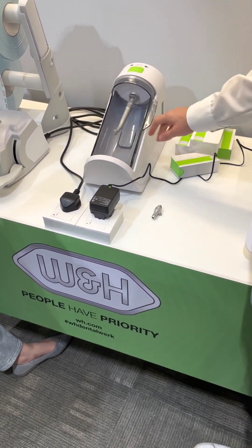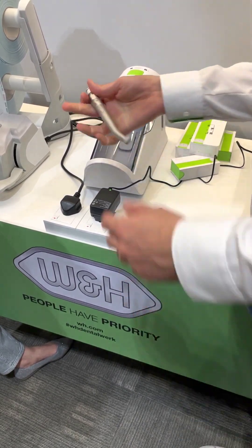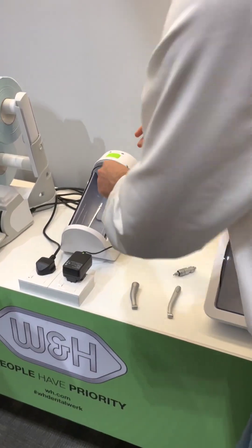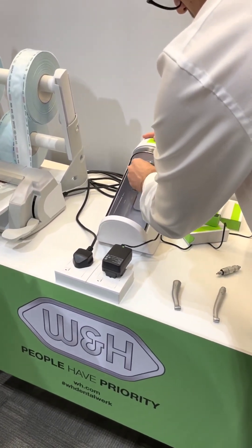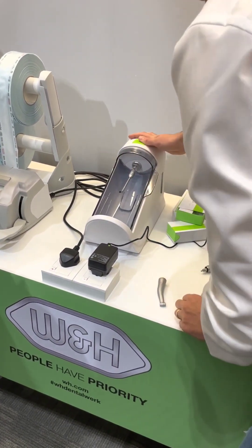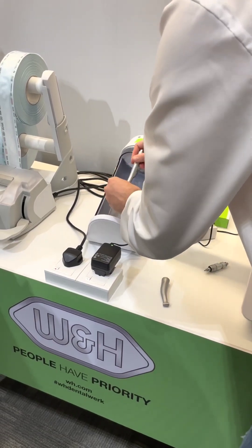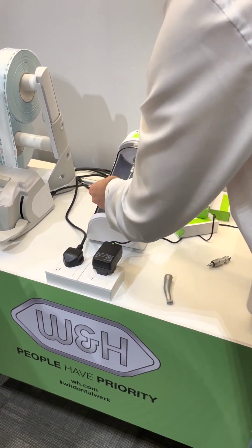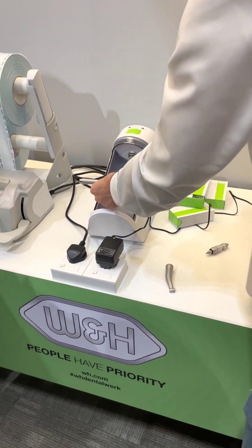When the cycle is finished, open, remove it, remove the end pieces and place the other one. You connect to the inner connection, place inside. In this case, you have to use the end pieces and the open door. It's the only case that works with the open door.